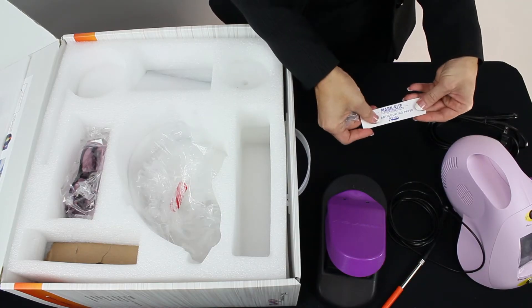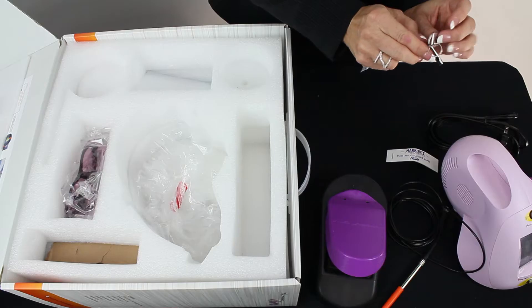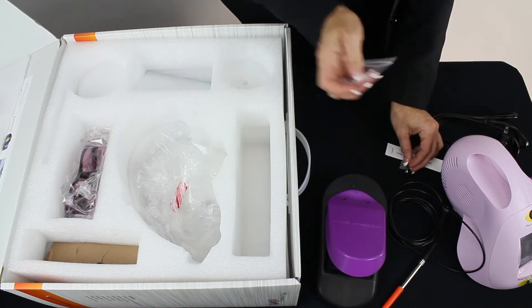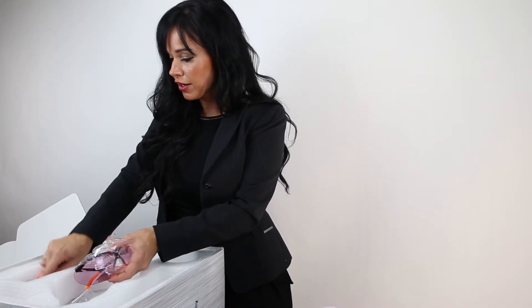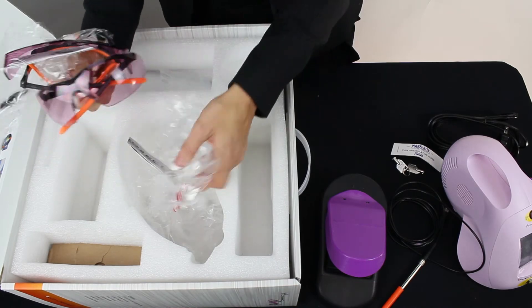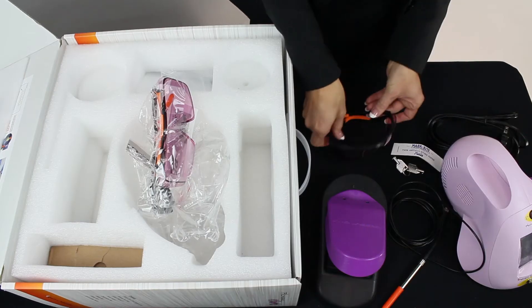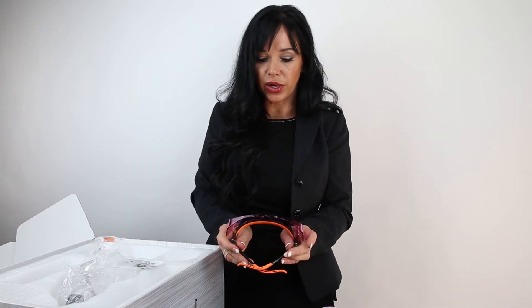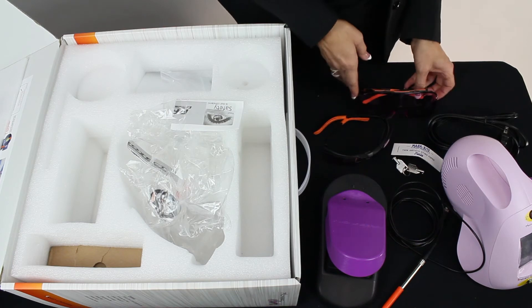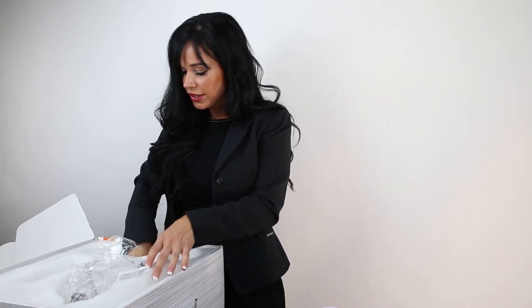Articulating paper, keys for the laser safety officer. We have two styles of eyewear: the sport eyewear and wrap-around eyewear so that you can wear your own eyewear underneath. And then we also have some tips to get started with.